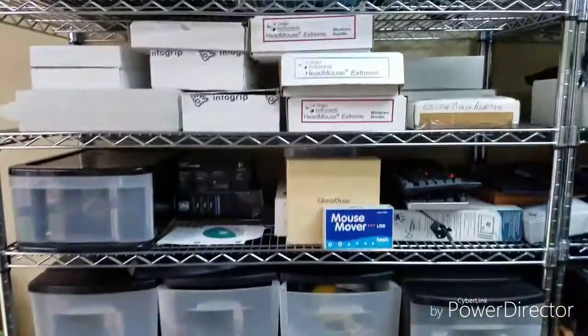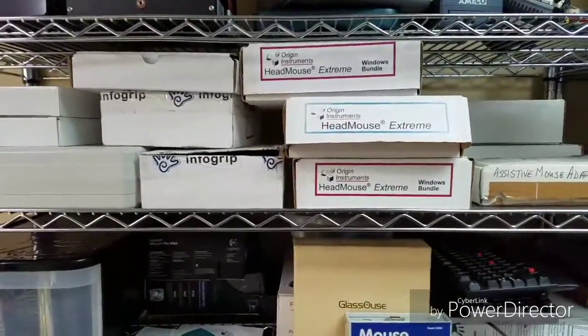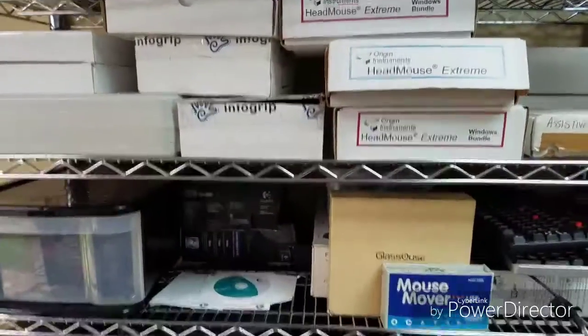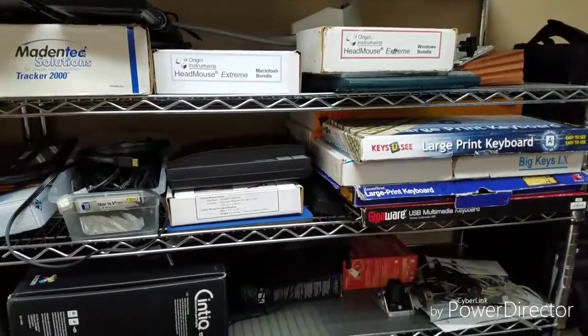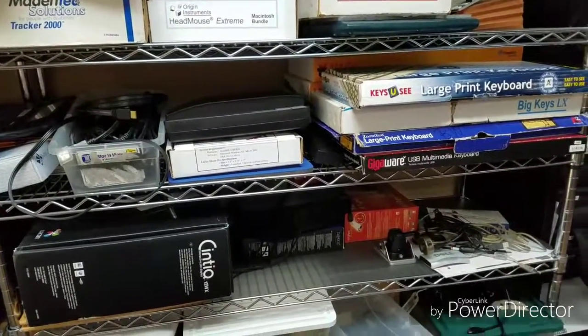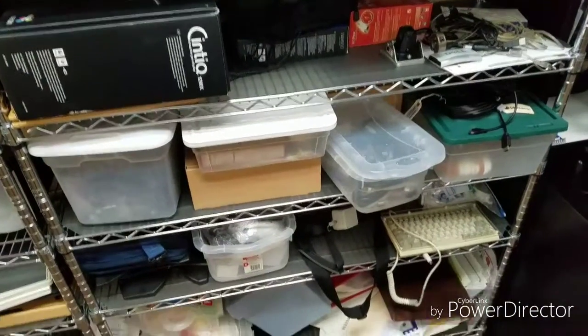We've also got quite a few head mice, so for someone who physically can't access a mouse but can turn and move their head, the Head Mouse Extremes and Head Mouse Nanos, which is its current iteration, works pretty well. We've also got a couple of different options for eye gaze. So if someone can't turn and move their head, they could also access a mouse by just looking in different directions, as long as they have good eye control.